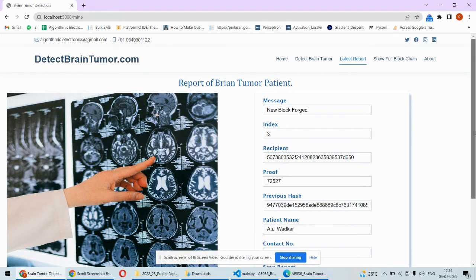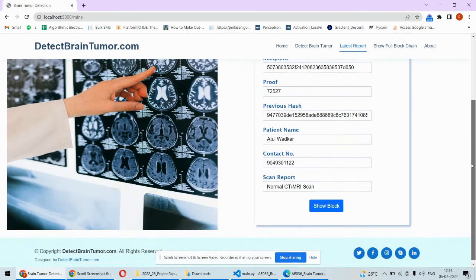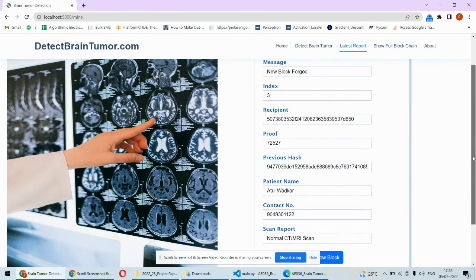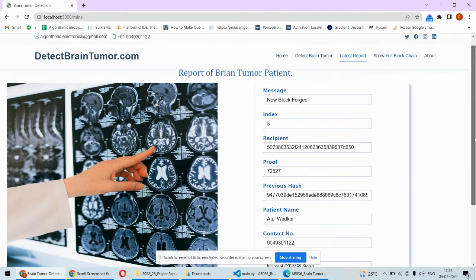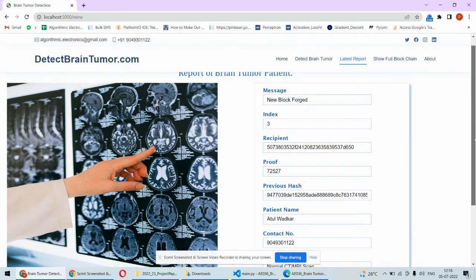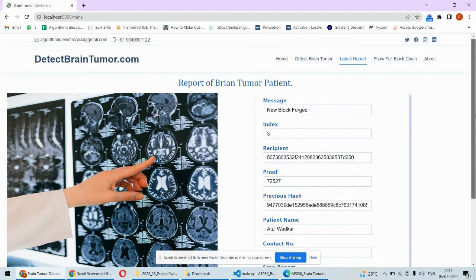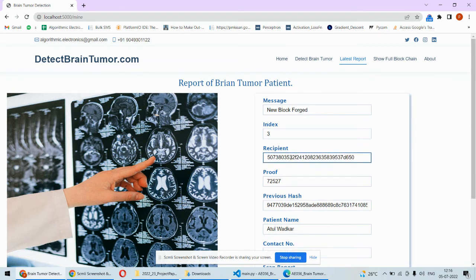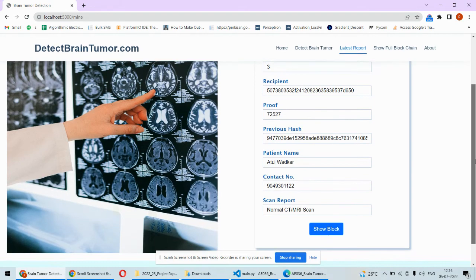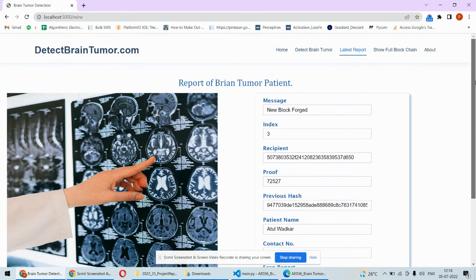Basically this is addition to this project. We are putting the data on the blockchain as well, so this is something different than the paper. So whatever is the current patient is there, his data and his all records are placed on this particular page.